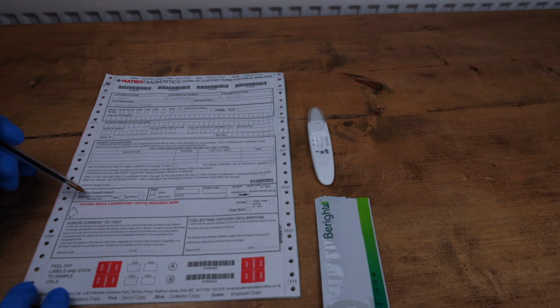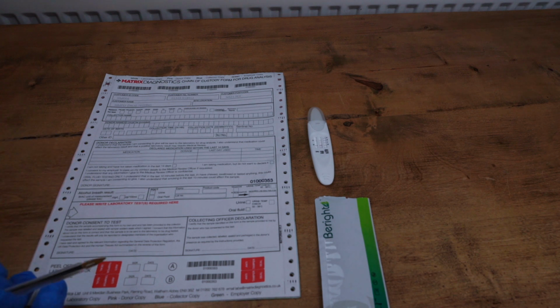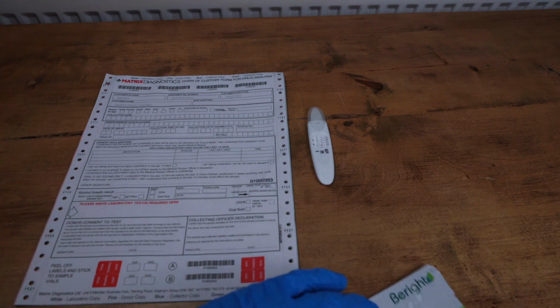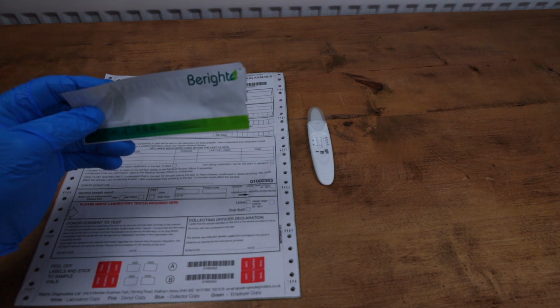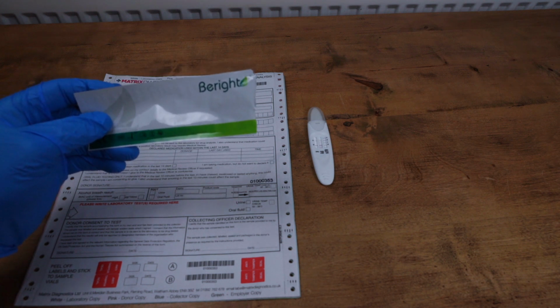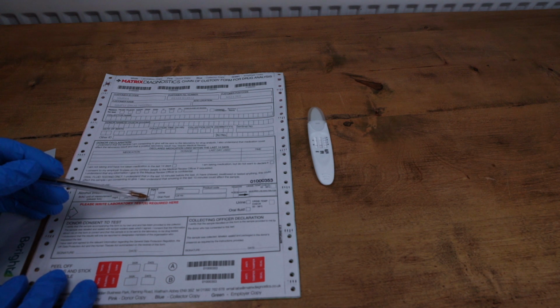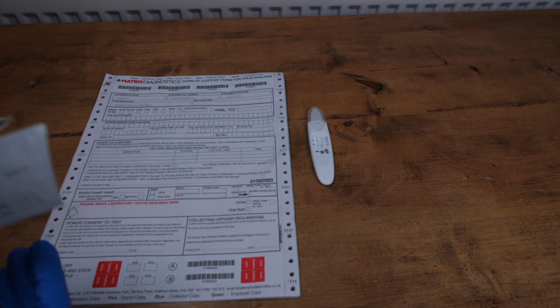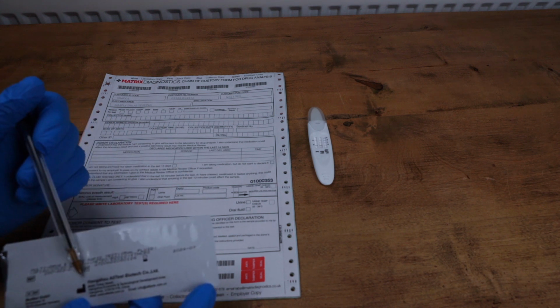Underneath that, we have alcohol breath result. That's not something that's going to be of concern to you, so forget that there. But to the right of that, it says POCT. POCT stands for point of care test, and this first line drug test you've done here was a first line or point of care test. So you'll need to write some details about this test onto the form. So you'll need to state whether it was a urine or oral fluid test that you did. You'll need to write down the expiry date and the lot number and product code found on the packaging itself.